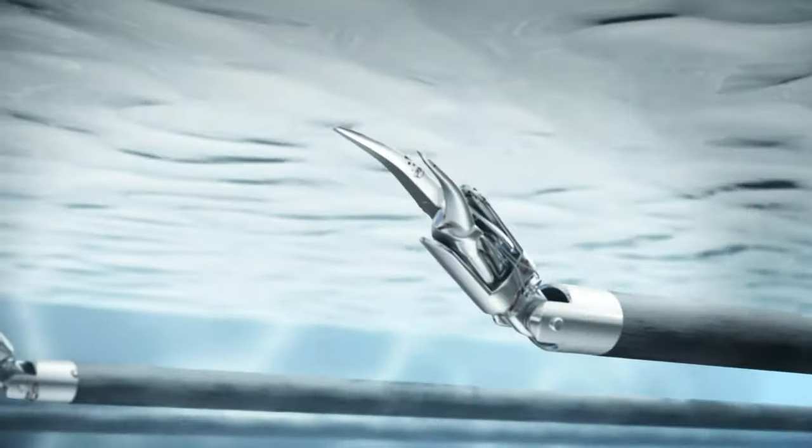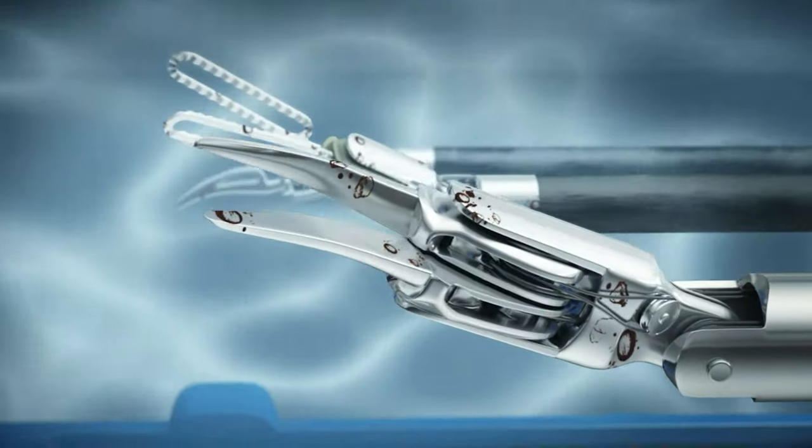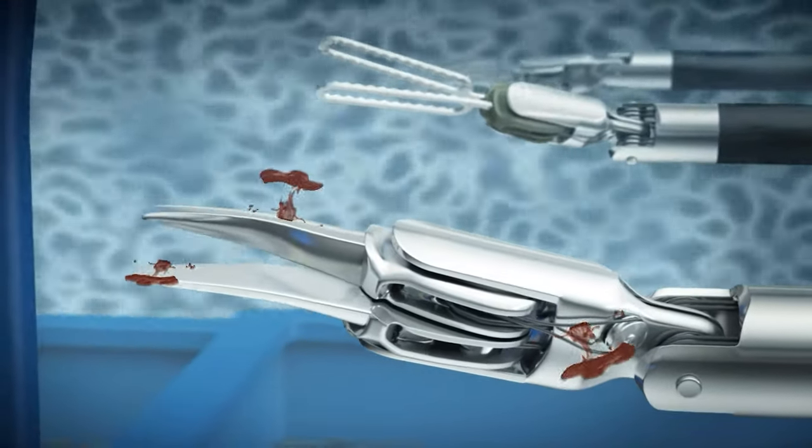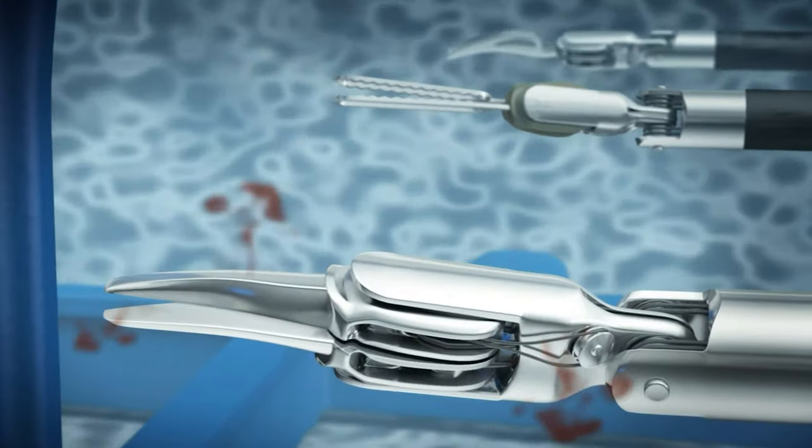Standard, surgical, MIS, robotic, and other instruments can be cleaned with ultrasonic baths specially developed for the application.